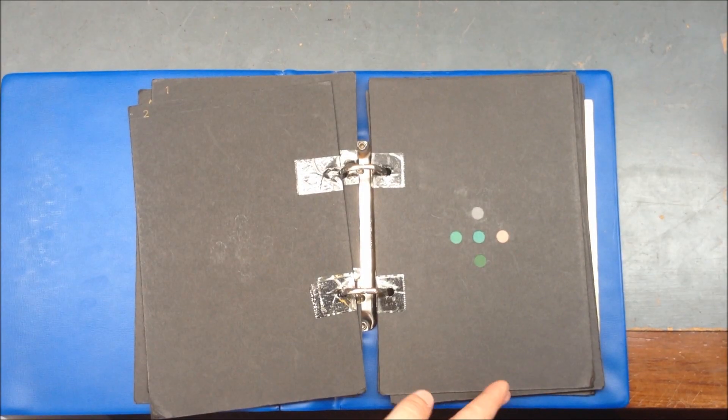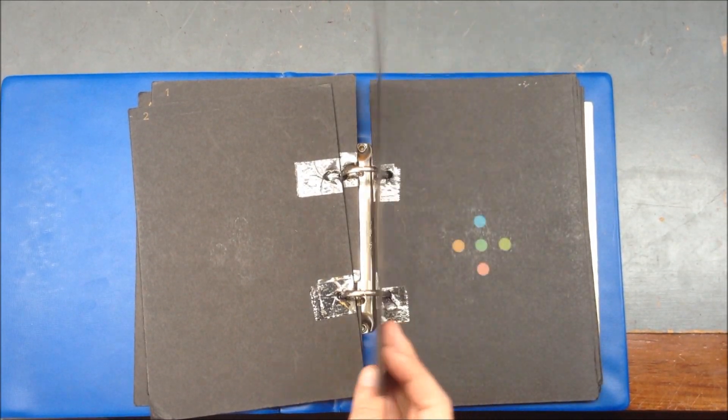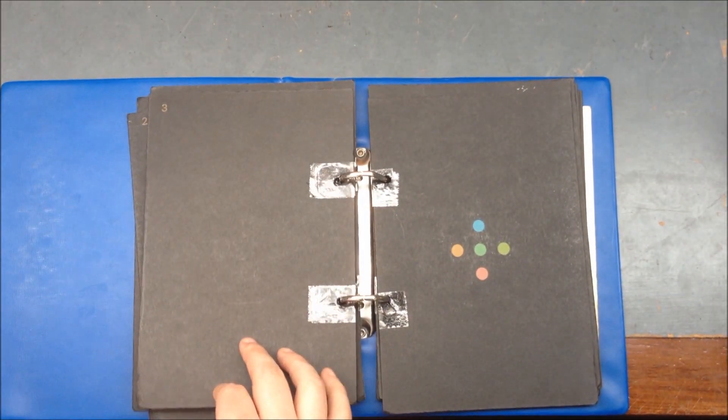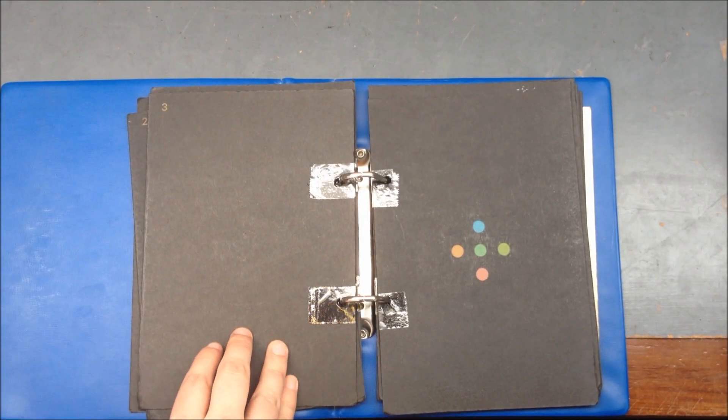Like the D15, the City University test identifies only those with a moderate to severe color deficiency. Those with a slight deficiency pass without error.